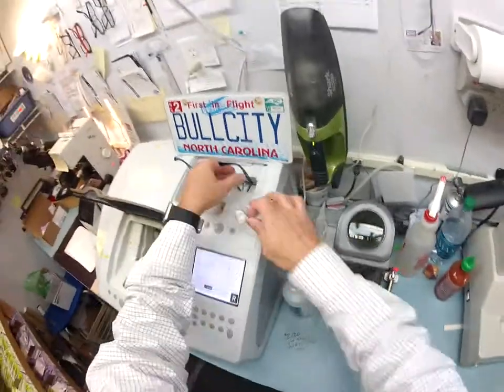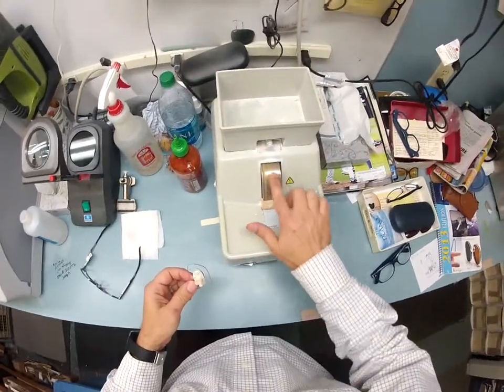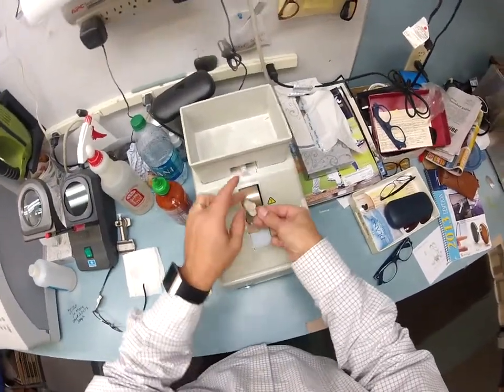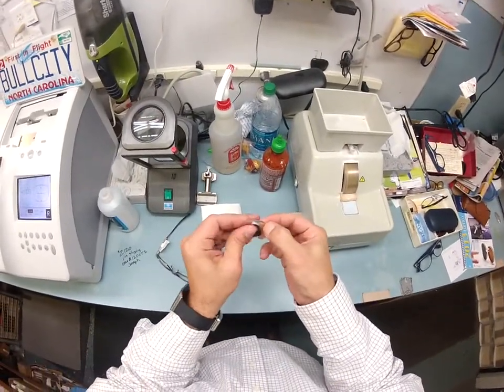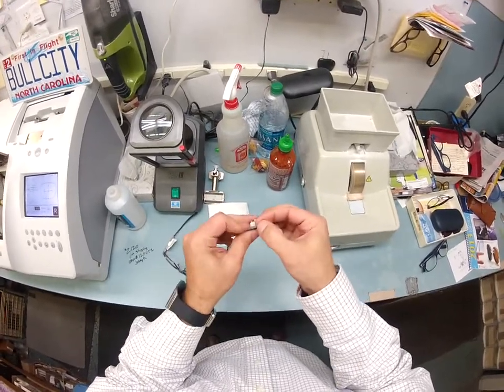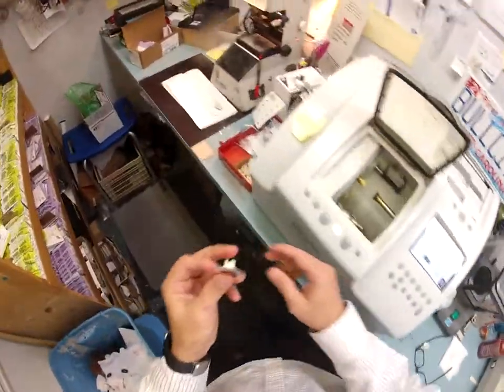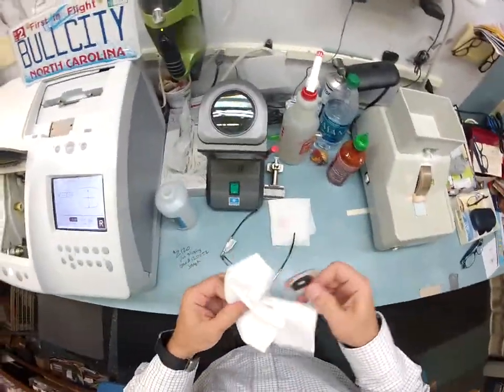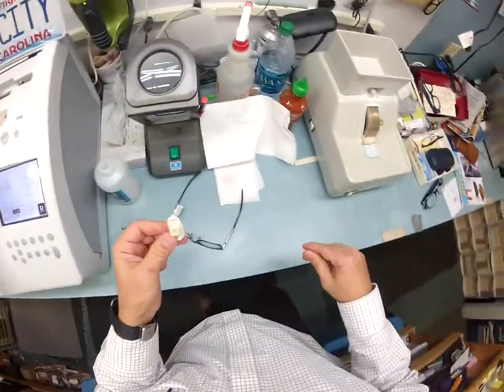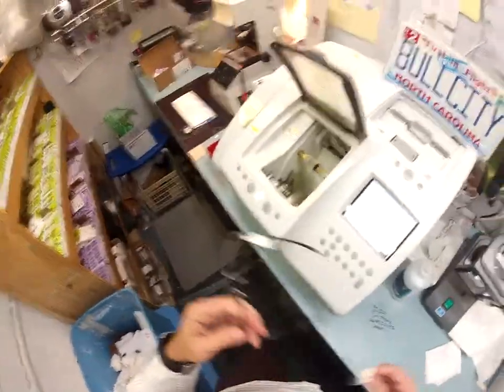The lens is finished — it is the shape of your frame. The last thing I'm going to do is put a safety bevel. This is just a hand stone and it works on friction. I take off any rough edges at the edge of the lens after cutting, and I take my thumbnail to remove the schwarf. Normally I would say, may the schwarf be with you. Just got a text message from my future scholarship student — every year I set up a scholarship to send someone through opticianry school. I have removed your schwarf and will wipe it off the counter.